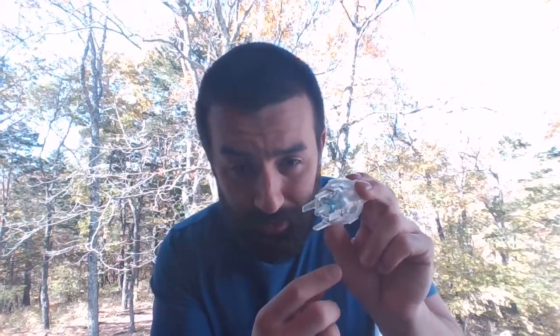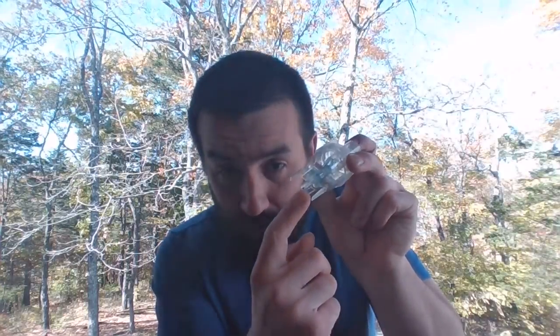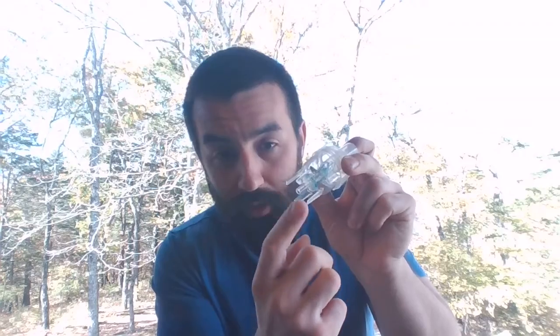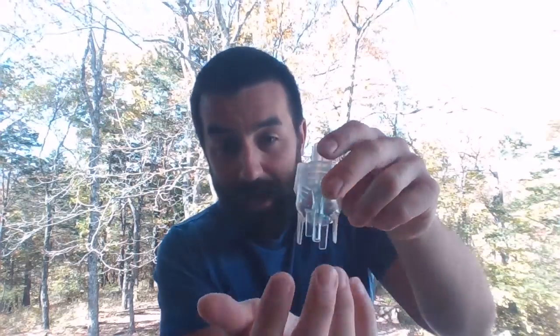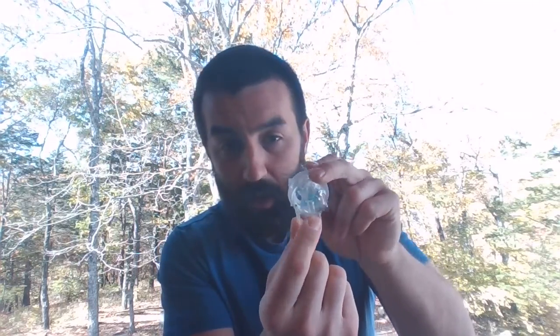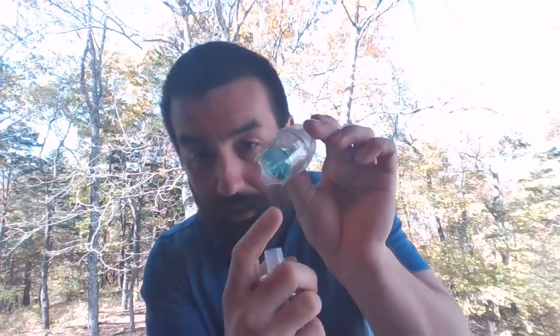Now, I always try and steer you in the right direction. If you look at this particular one, this Misty Max, you can see we've got a spot that would accept oxygen tubing here. There's four other little pieces here that I could put oxygen tubing on, but these are just the legs of the nebulizer, allowing it to sit upright. I have literally failed people on this competency for sticking oxygen tubing onto these legs and wondering why they don't have any aerosol. So we need gas to go right into the center of this thing. The other one doesn't have that problem. It's only got one piece where you can hook stuff up. So not as likely, but still could happen.